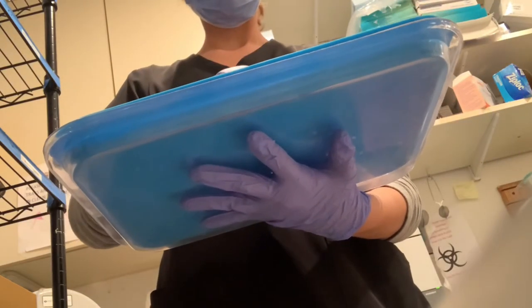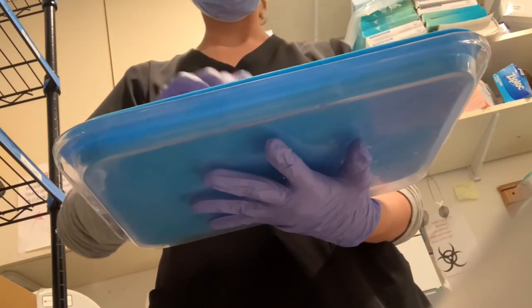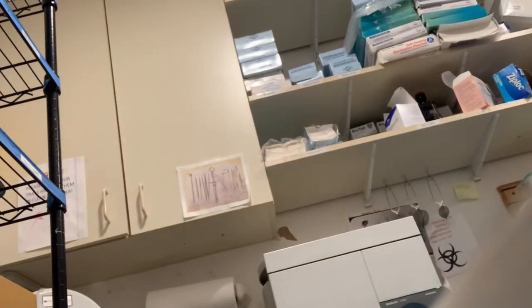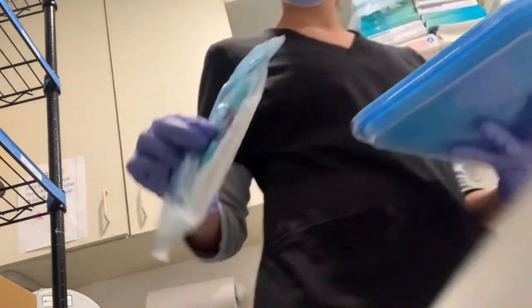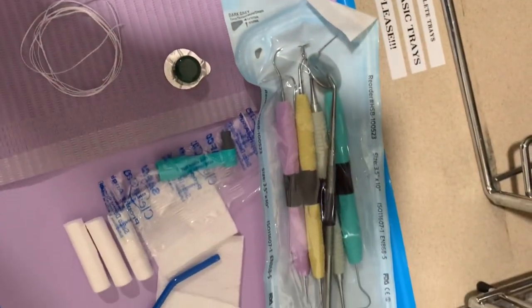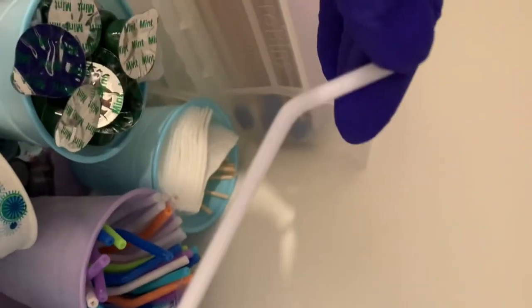And some two by two gauze — I usually put four or five; always put more than needed just in case. Also the most important part: the hygienist tools, which always go into our autoclave and are washed before placing on the tray. A really crucial step here is to try to make the tray as neat as possible — it just makes the hygienist's life easier and it doesn't look messy for the patient. That's the layout of a basic dental hygienist tray. We also have plenty of supplies in the actual patient room.